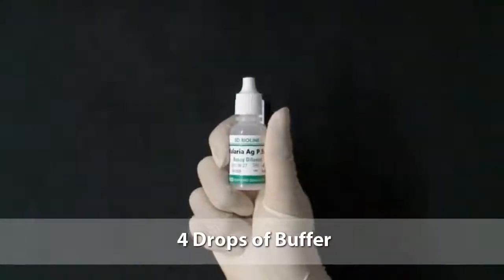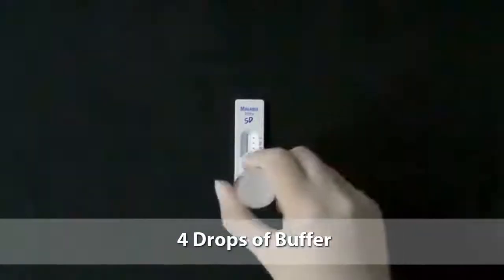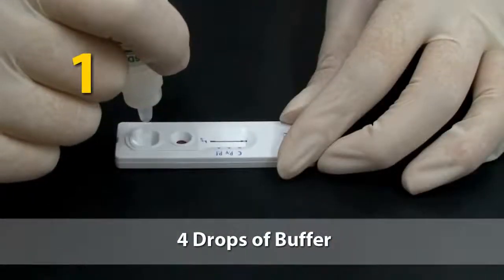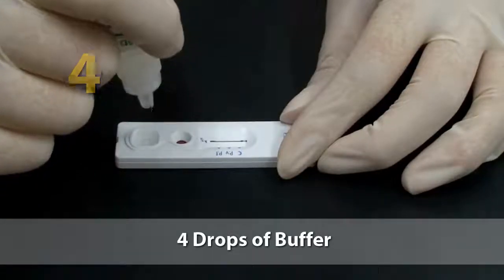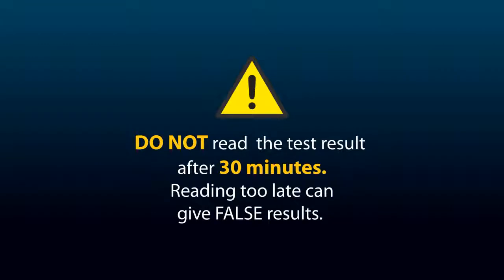Add 4 drops of buffer into the square buffer well. One, 2, 3, 4. Wait a minimum of 15 minutes, up to 30 minutes. Do not read the test result after 30 minutes. Reading too late can give false results.